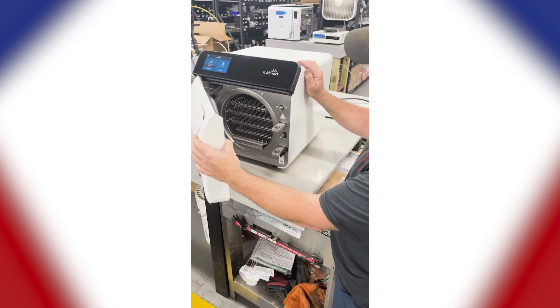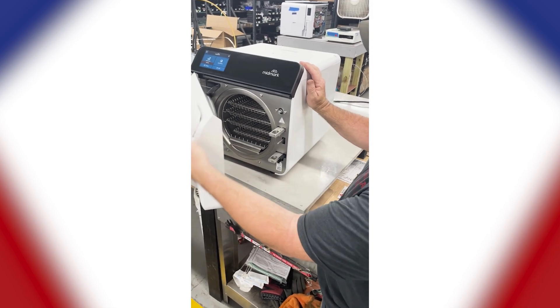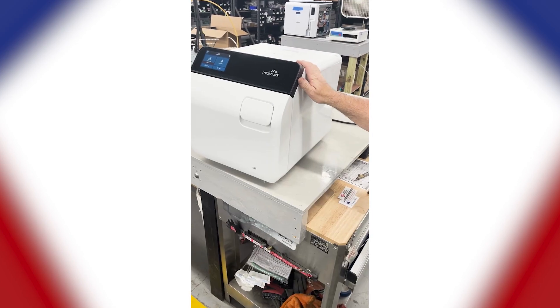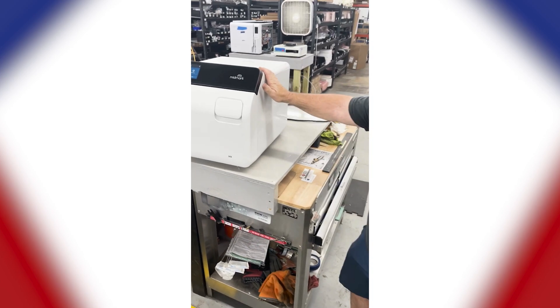I like the door shutting mechanism now. You don't have to lift the handle up and push down — all you have to do is give it a shut, just like that. It's a real nice machine.